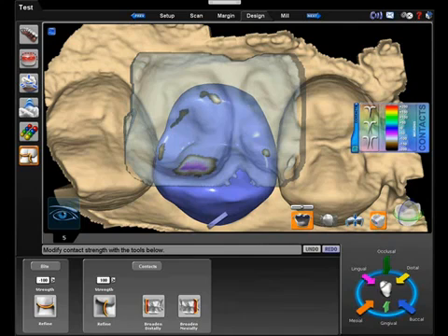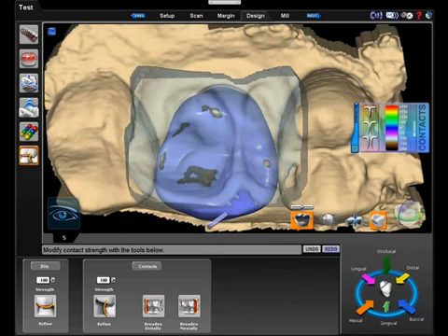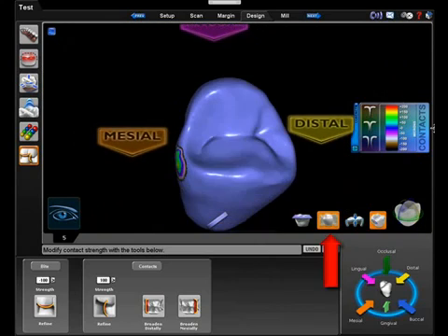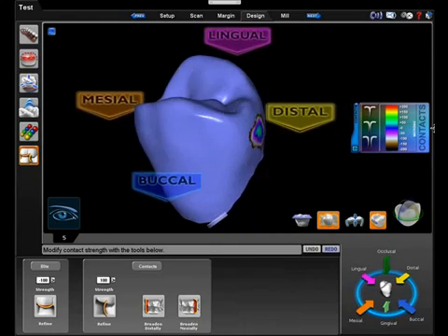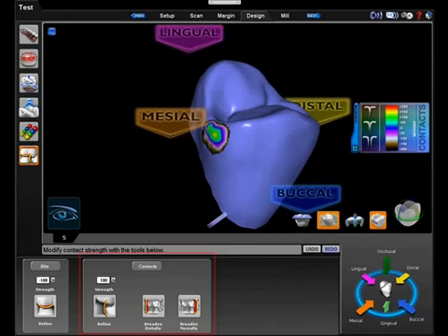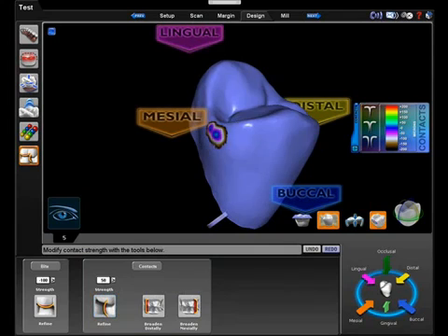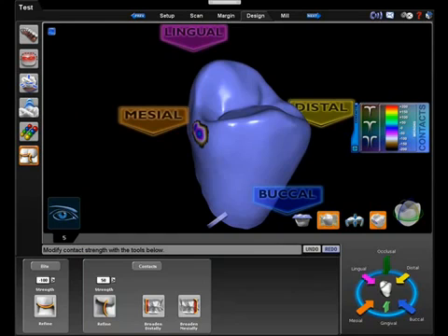By circling individual areas of the proposal, we are reducing a smaller amount of the surface area of the proposal. We can click hide model to hide the proximals and get a good look at the interproximal contacts. In here we can also refine the contacts. With one click of a button, we have reduced both sides of the proposal.